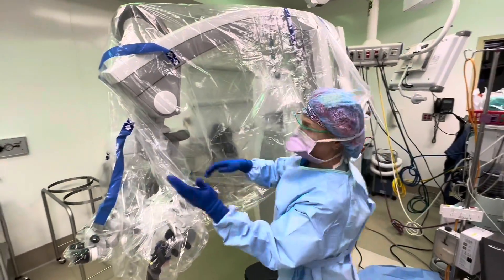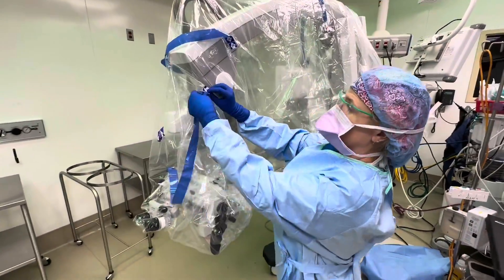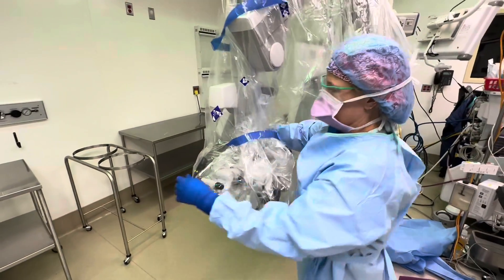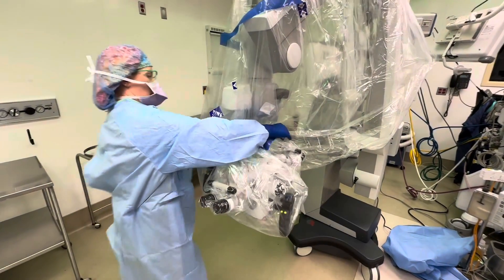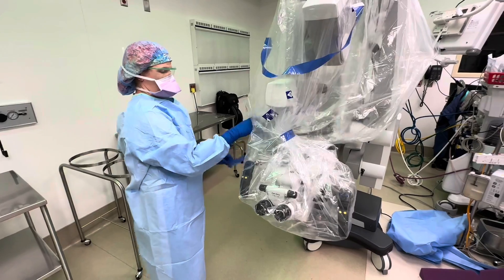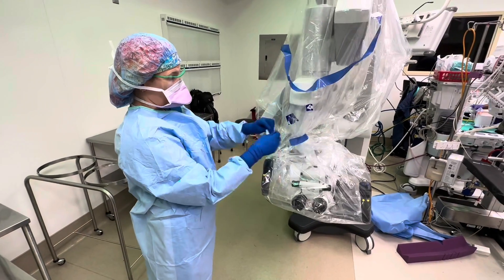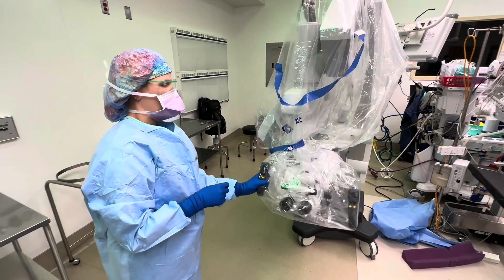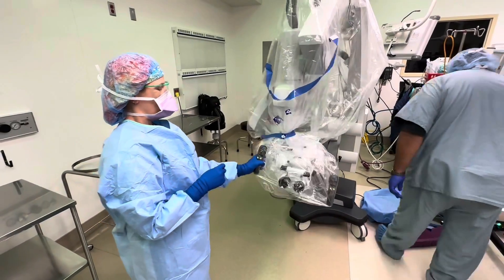Usually your assistant takes the strap. Bring it all the way around — keep it loose. You need to make sure when you tie it that it is loose. You don't want to tie it snug yet. Make sure when you press it that it moves.